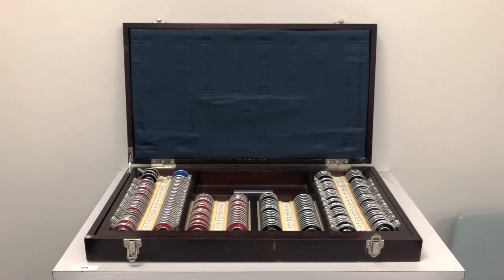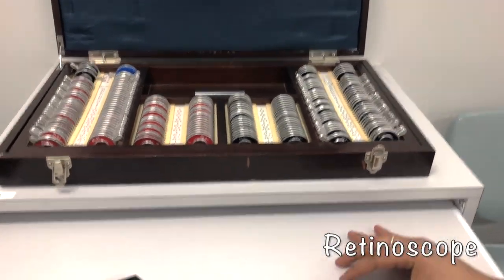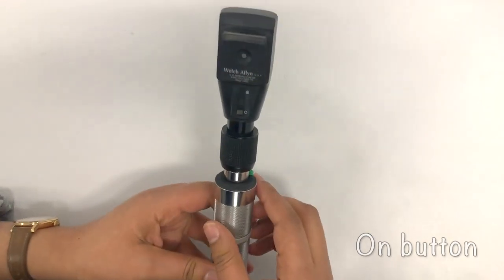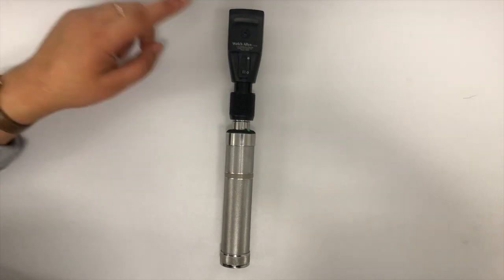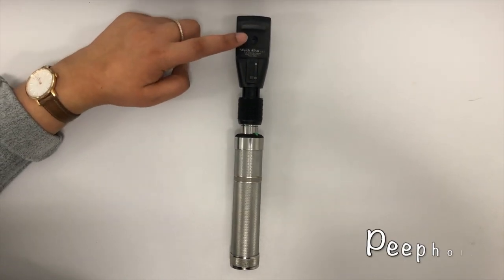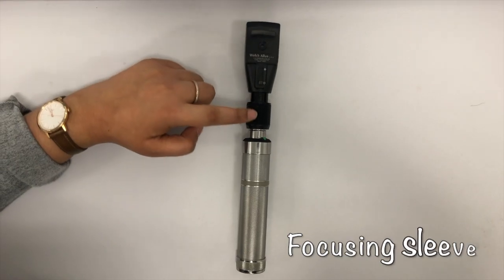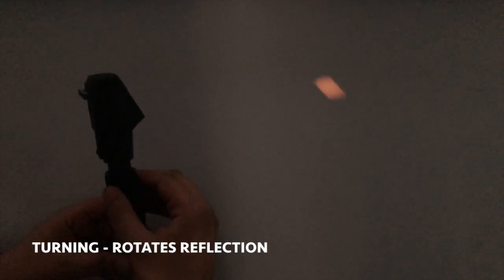To perform retinoscopy, the equipment required includes the lens trial box and the retinoscope. The retinoscope is composed of several elements: the on button, the forehead rest, the peephole which the examiner looks through, the cross-linear polarization filter which needs to be down during testing, and the focusing sleeve. Raising or lowering the sleeve changes the focusing power of the beam, while turning the sleeve rotates the reflection.